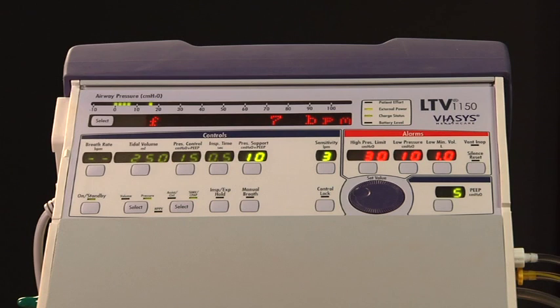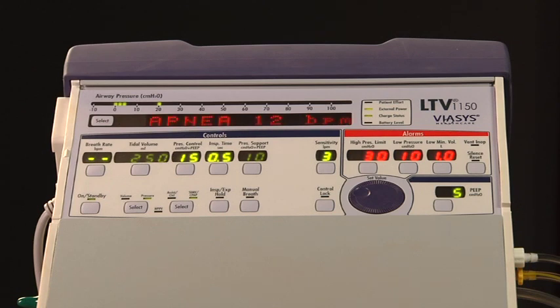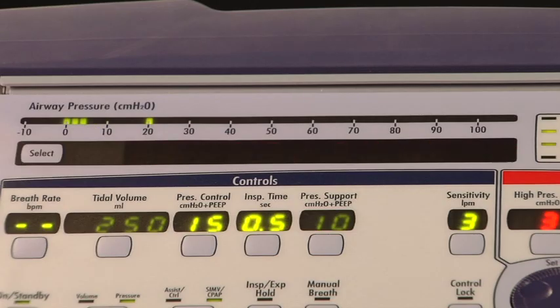First, we will discuss all of the patient alarms. The apnea alarm occurs when the time since the start of the last breath exceeds the set apnea interval. When an apnea alarm occurs, the ventilator will enter the apnea backup mode of ventilation. The control displays used in the apnea backup mode are illuminated. All other control displays are dimmed. The audible alarm is also sounded.